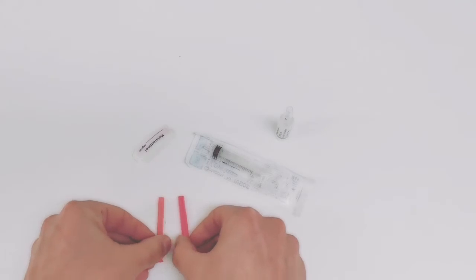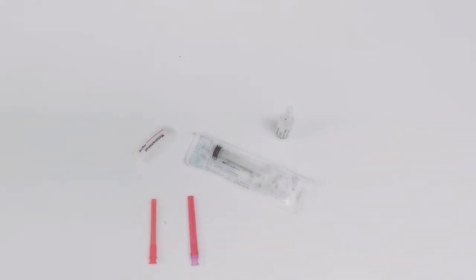These are both blunt needles. One's pink, one's red. The pink one has a filter, the red one does not.